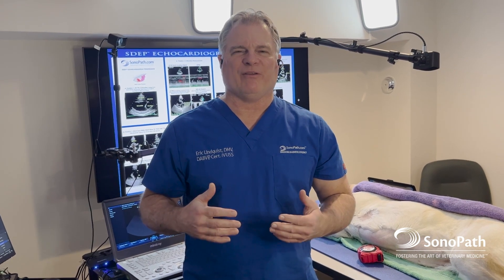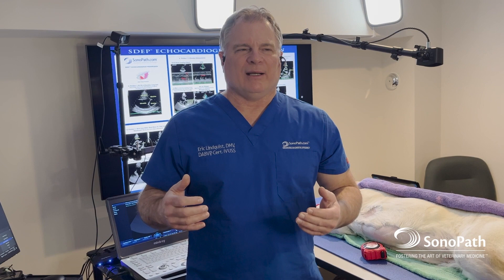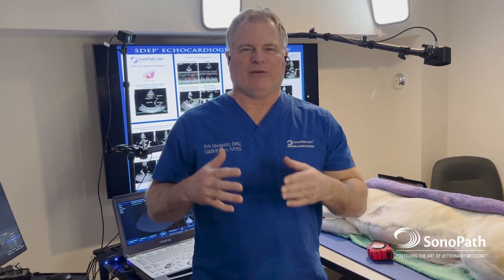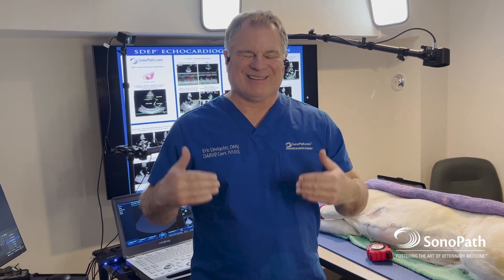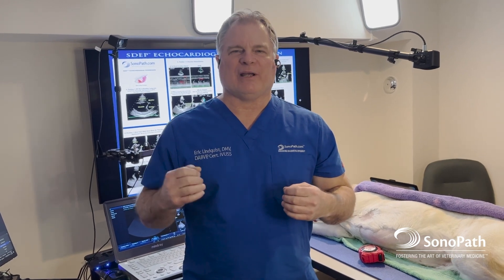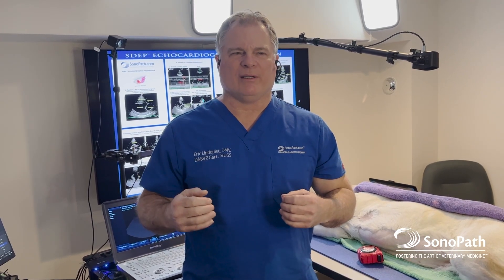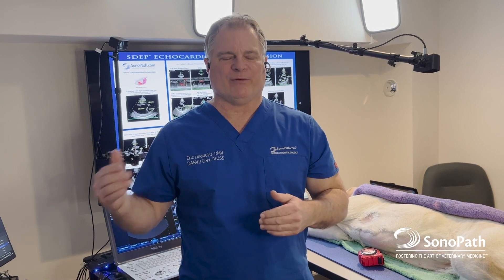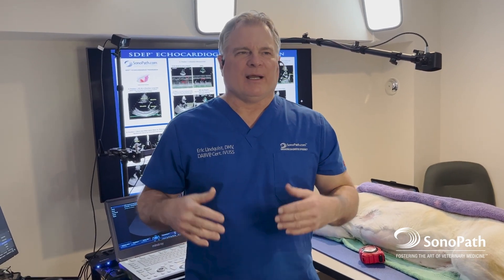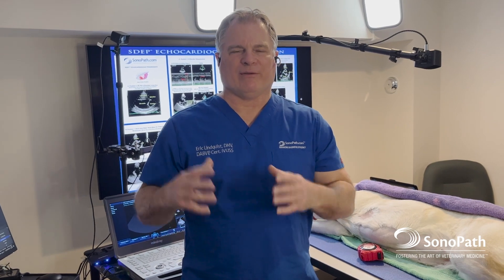Unfortunately in the industry today there's a lot of misinformation about what is a good machine. There are many factors that go into image optimization — getting consistent, regularly attainable, solid diagnostic image quality in every type of animal from a ferret to a Great Dane and everything in between. Most of it is physics, and a lot of it is software.